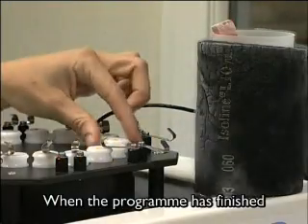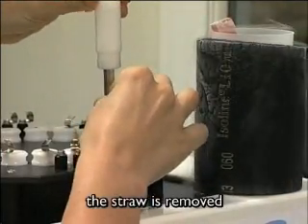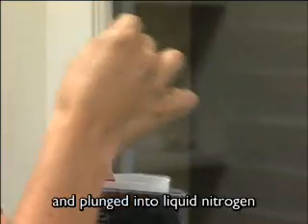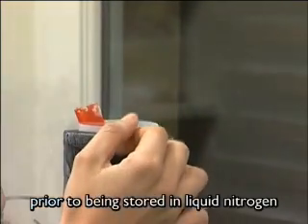When the program has finished, the straw is removed and plunged into liquid nitrogen prior to being stored in liquid nitrogen.